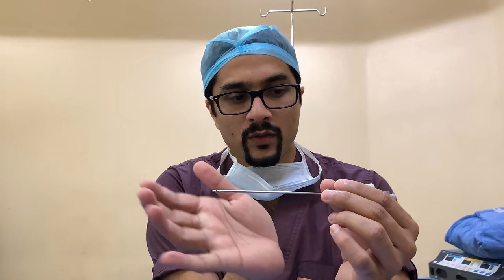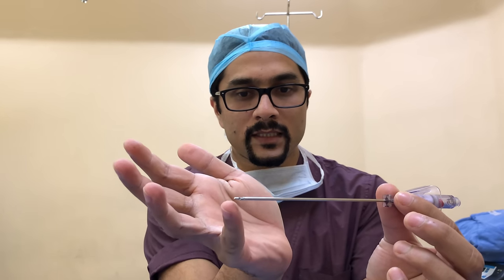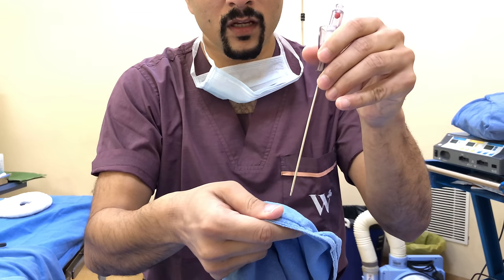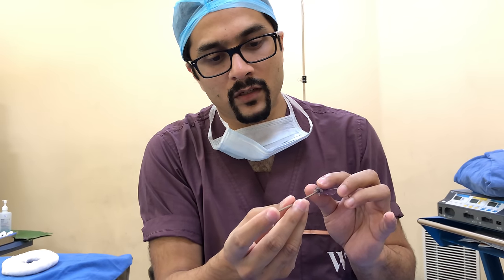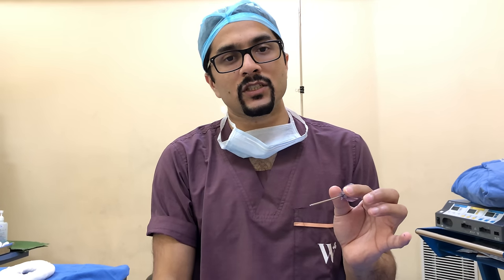Look at this Veress needle closely. You can see that it is blunt, or there is a beveled edge. When you press it against a hard structure, the tip gets retracted — it's a spring-loaded instrument. So when pressed against the abdominal wall it cuts through, but once it cuts through, the blunt tip comes forward again. This prevents injury to the bowel.